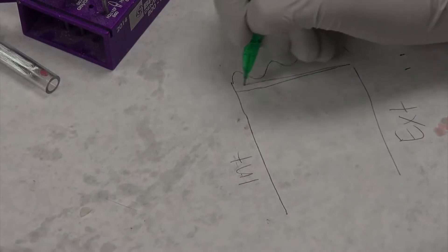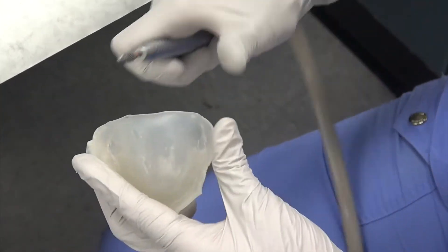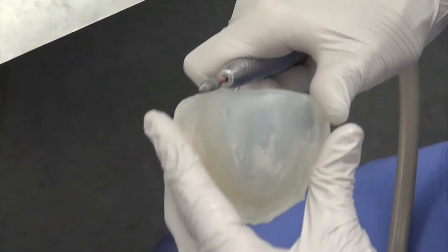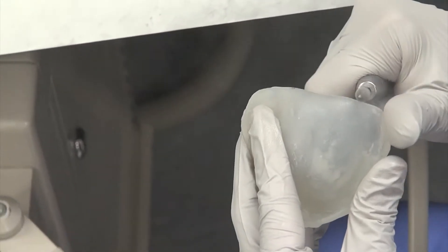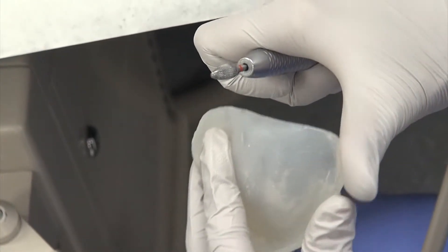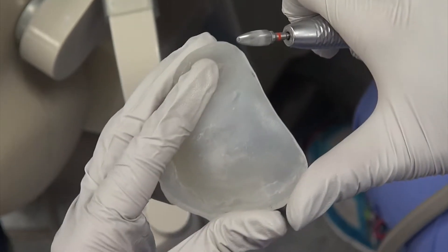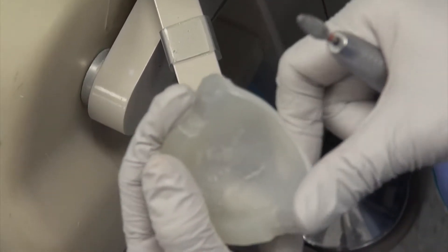You want to come through and flatten out, get rid of that rigidness, and then chop off the pointy corners. So we're going to go flat, angled, angled. So I'm coming through it and you want to keep it moving really fast. Because the moment you stop it and you kind of are trimming in one section, then you'll end up cutting way too much off. So by keeping kind of fast motion, and this is called your palm thumb grasp, you're potato peeling it. So I'm cutting way across. See how I flattened it out now. So I did several swiping motions to flatten it out. But now you only need like one motion, maybe two, to take off those edges. Very minimally.